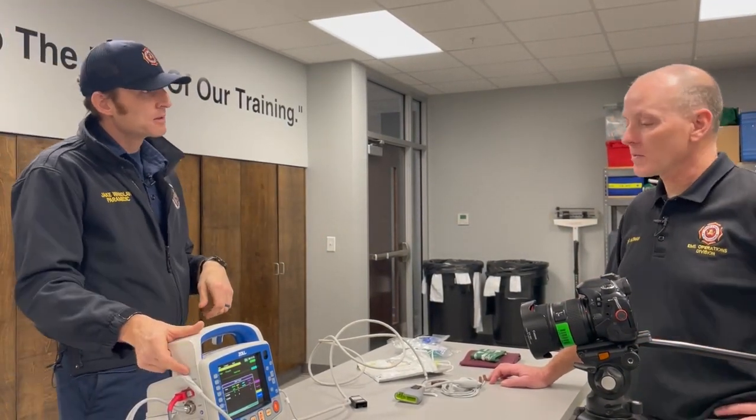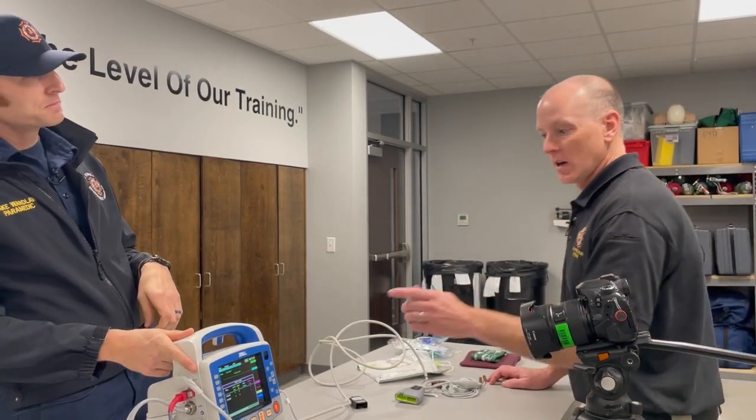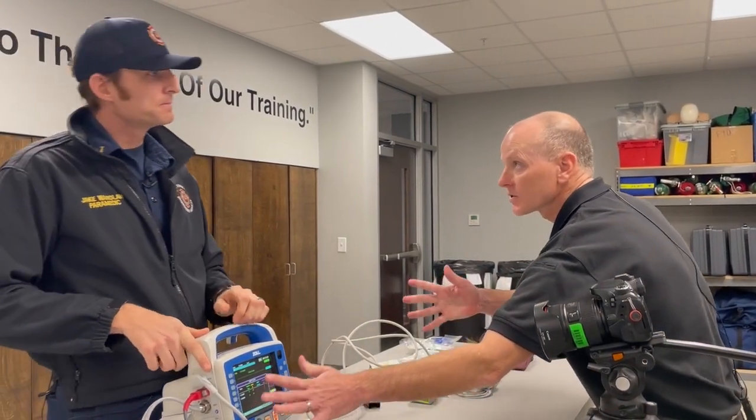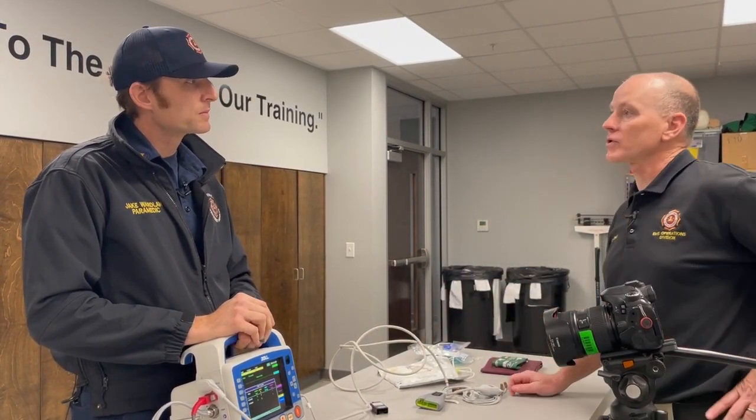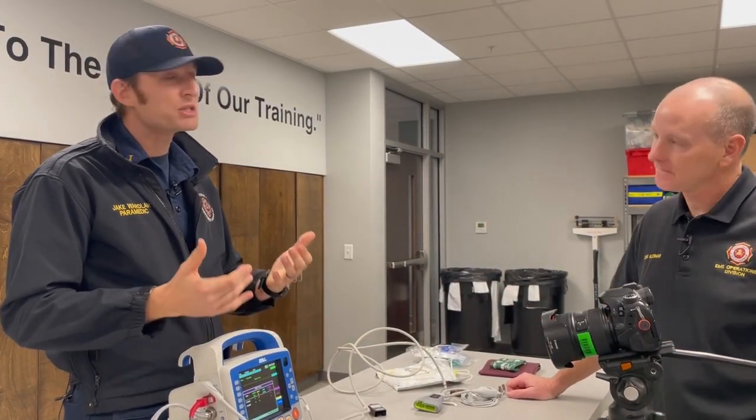So much better. Yeah. Instead of you all trying to hit the print as you're pushing your adenosine or something, we can actually just let the treatment work, and then when we see it working, push the button. Essentially, it does it for you. Awesome. It makes it so much easier.